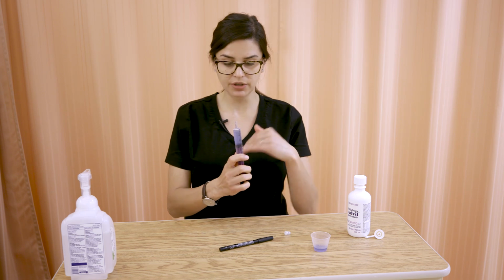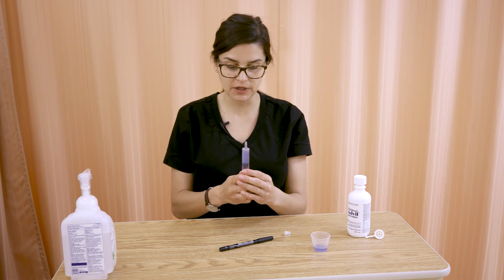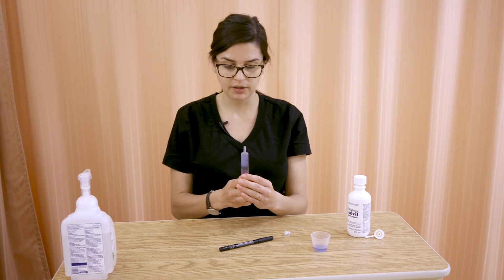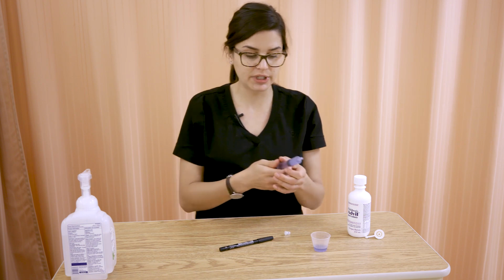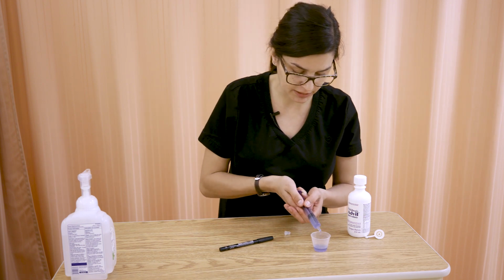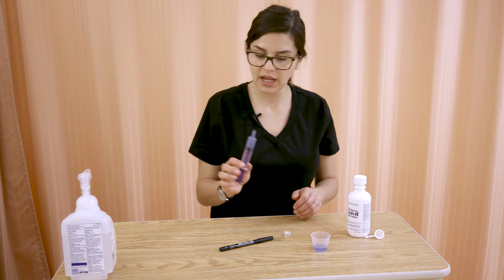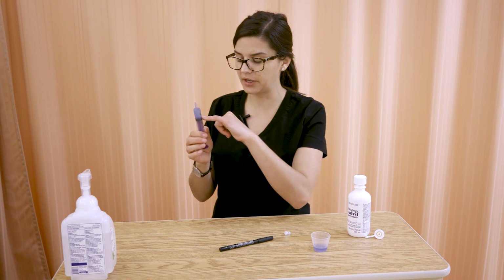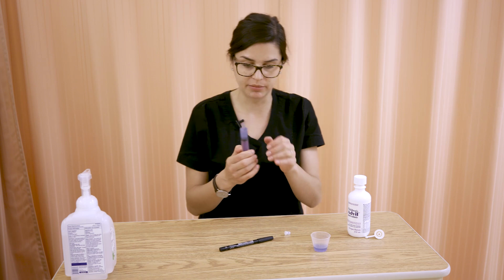So when you're recalibrating or refilling your syringe, once you've got rid of the bubbles, hold it straight up and down and fill the entire syringe. You might have to do that a couple of times. Make sure you fill the entire syringe. And then you can tip it down like this and calibrate to, say, that 5 mLs that you wanted. And now you're full to the top and you have 5 mLs, and make sure you're reading it correctly, that the top line of the plunger is at the 5 mL marking.